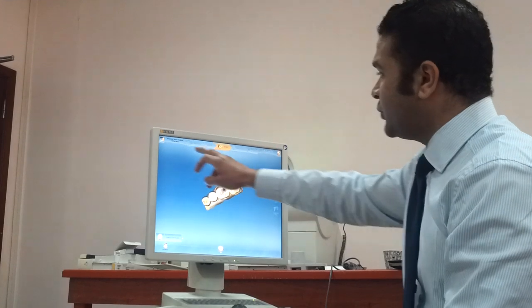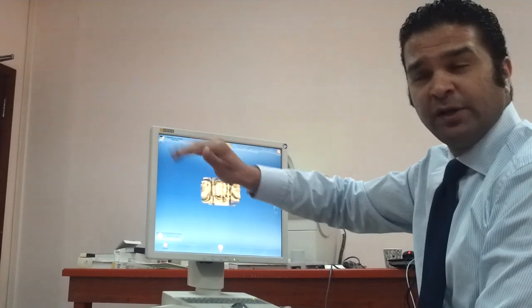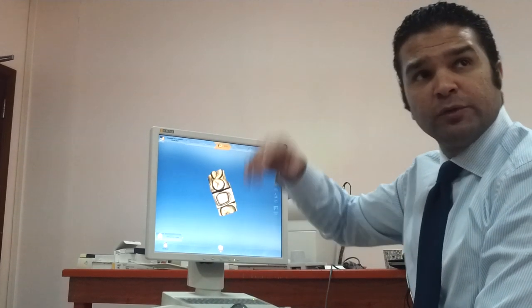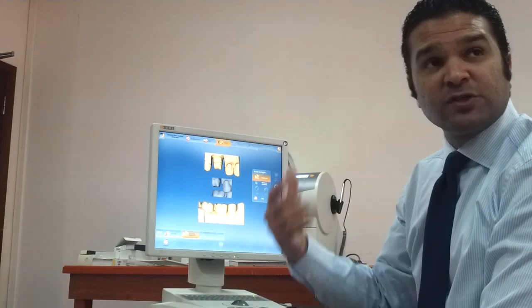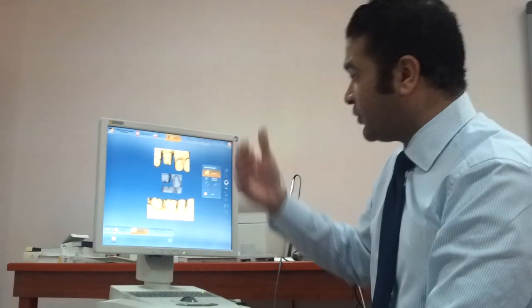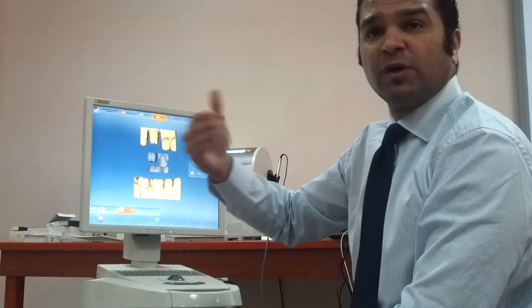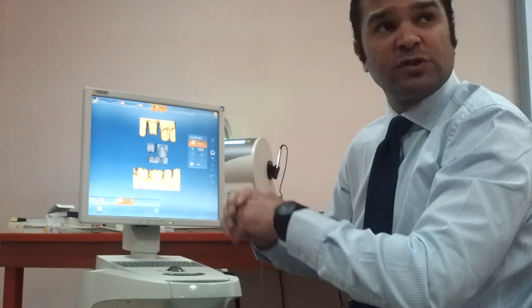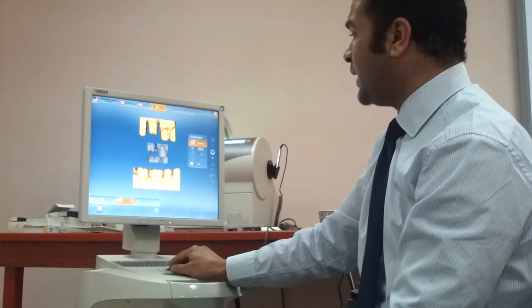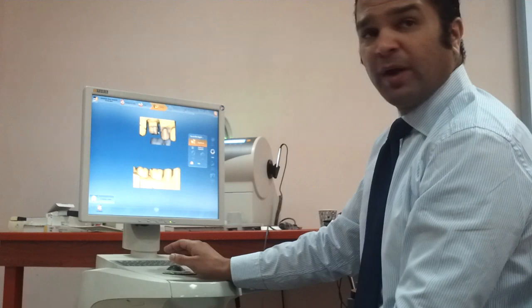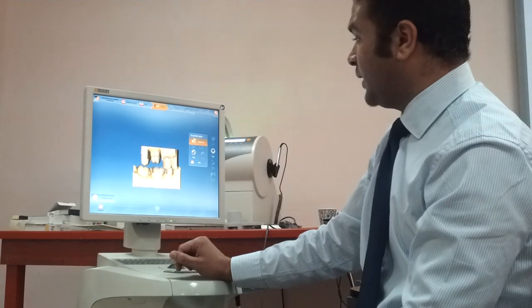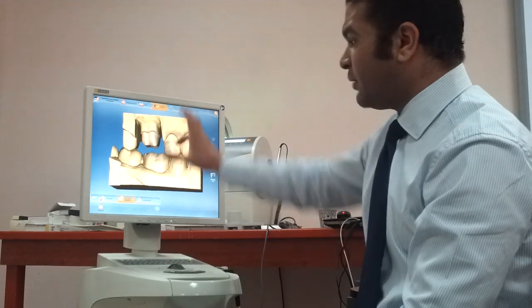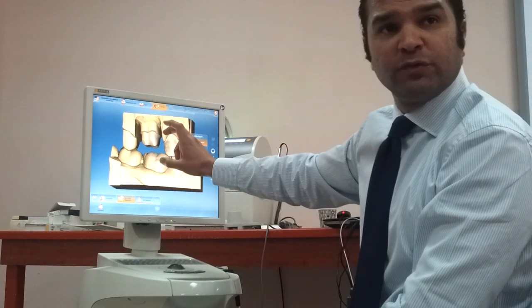It's a very user-friendly software with five phases. The first phase is administration, where I demonstrated the case, type of restoration, and material selection — for example, a feldspathic porcelain for the anterior region with a flexural strength of 120 megapascal for highly aesthetic restorations, or a stronger glass ceramic for the posterior to withstand masticatory forces. I'll drag the buccal bite to stitch upper and lower jaws together, maintaining the patient's vertical dimension and occlusion.